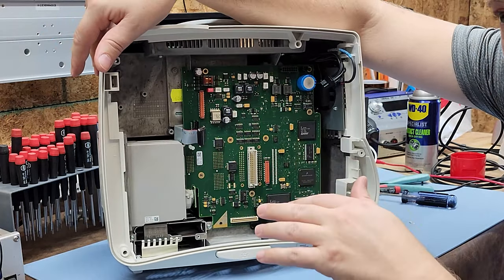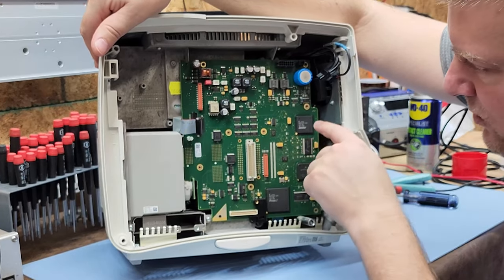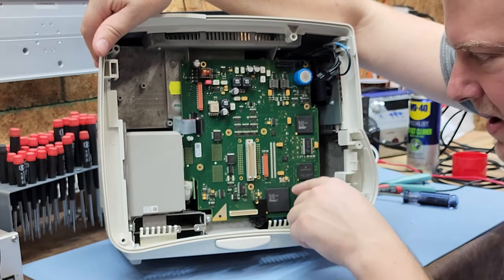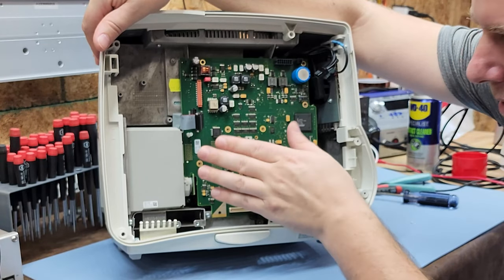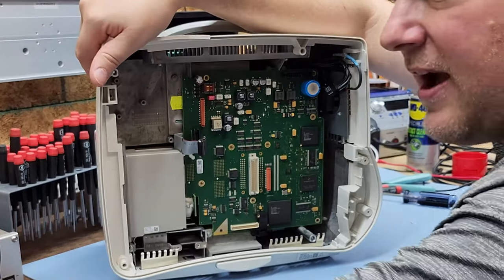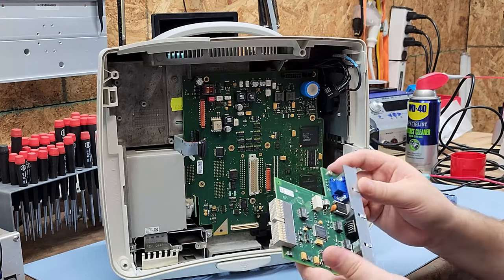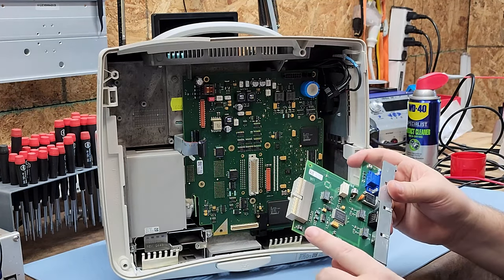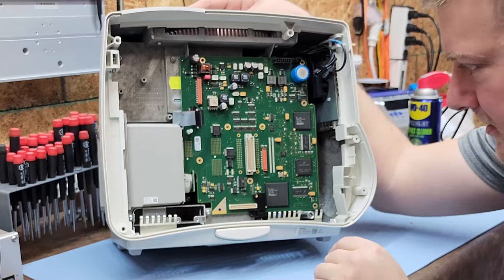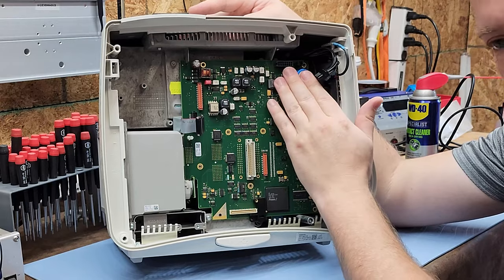Based on the cables, I'd assume you're getting 12V, probably 3V as well. You have inductors and a large capacitor indicating a high-voltage DC rail. Anytime you see capacitors and inductors with a transformer, that's another power rail. CPUs will have their own power rail — almost always around 3V, sometimes 1.5V depending on the CPU type — and you'll usually find those phases near the CPU itself.